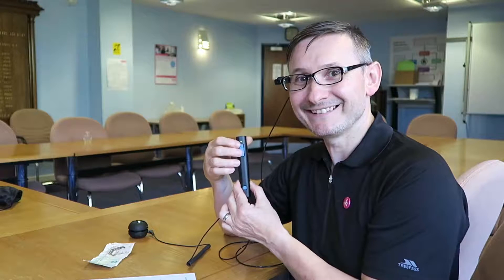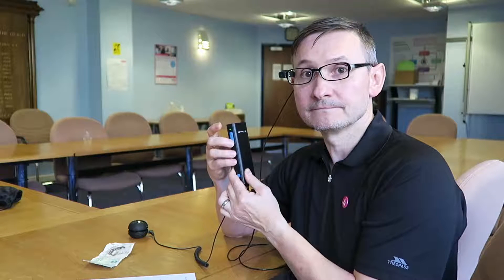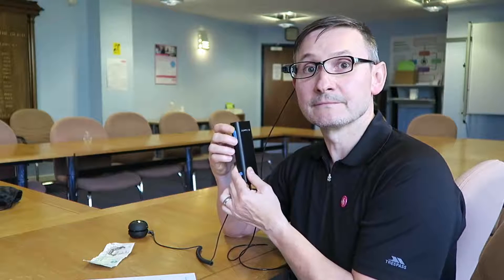That's amazing! For fast forward and rewind, you press the trigger button and one of the side buttons. It skips forward: 'learn new software or use other tools' — brilliant! Here's another gesture: I'm going to read again, then stop it by putting a stop gesture — hand fully out — in front of it. Stop! That's it.